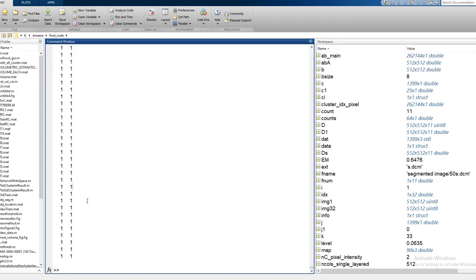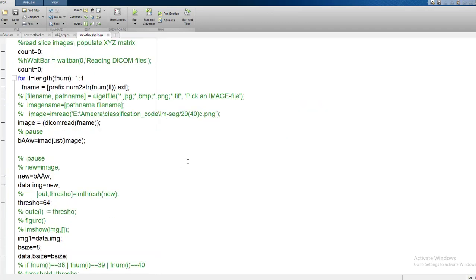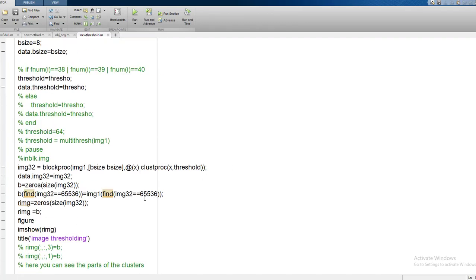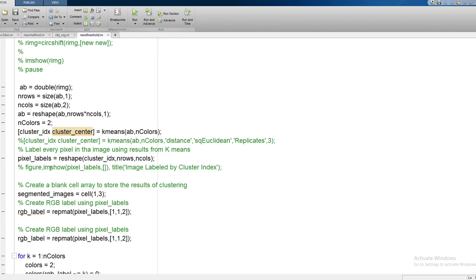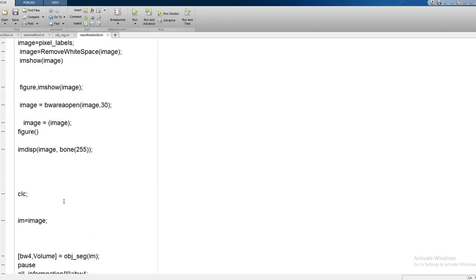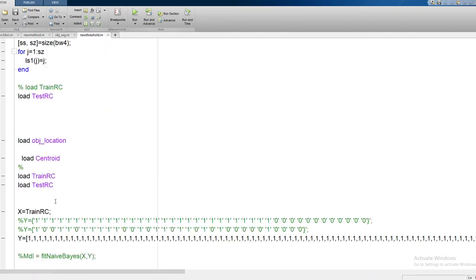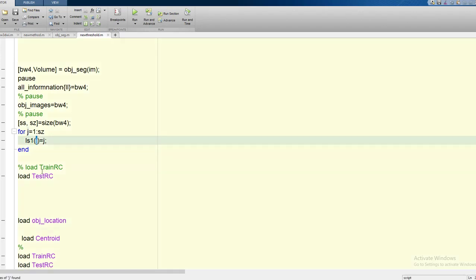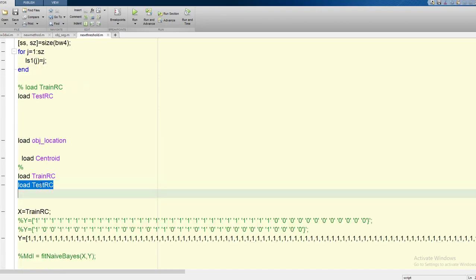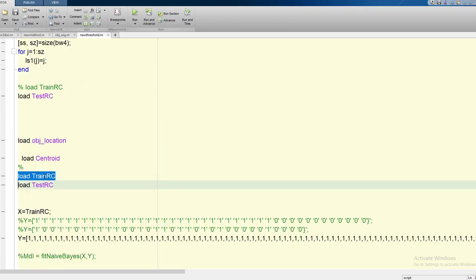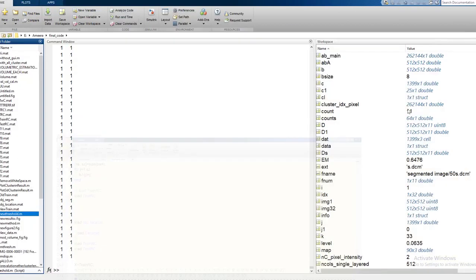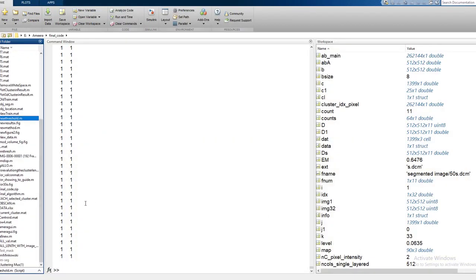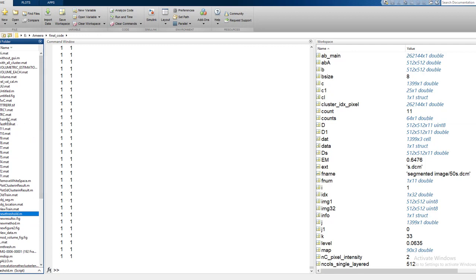Now it's time to apply some machine learning on it so that we would be able to measure the volume, do the volumetric measurement on it. Where is my program? Yeah, new threshold. So I have already explained you the concatenated part. It's time to get fed some already measured nodules from other skilled specialists and train a model corresponding to each nodule. My data is being put in train_rc, that is a mat file, and the label is being fed into Y matrix. Let me show you the train_rc because it will be easy for you guys to understand the architecture and how I am doing this thing.